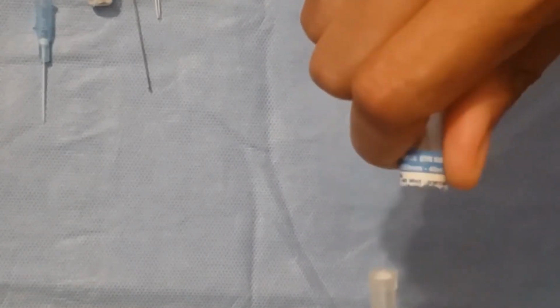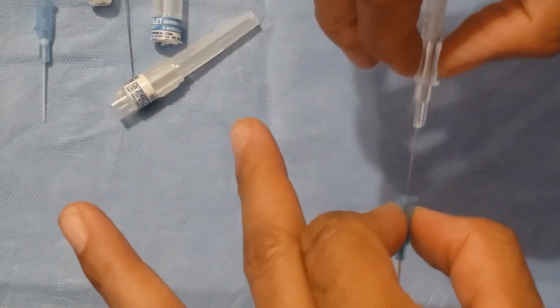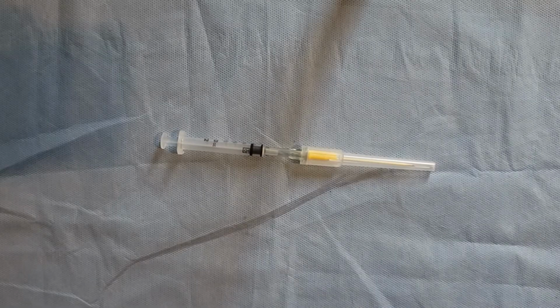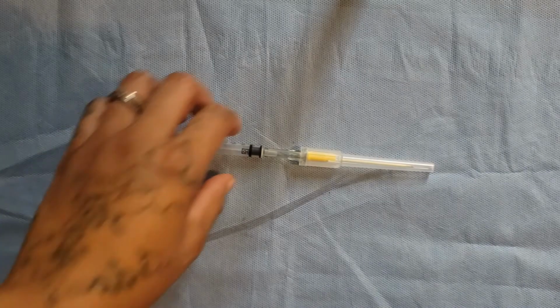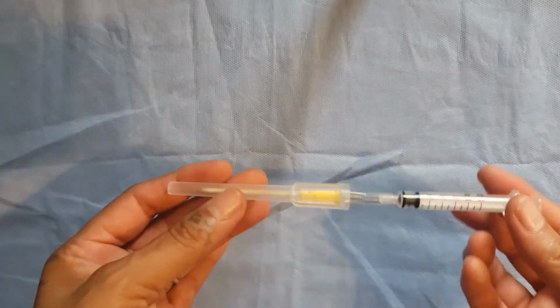This intracath is encased in a hard plastic shell with paper seal indicating sterility. If the paper seal is broken or damaged, you should not use it. Twist the case by holding the top and bottom pieces firmly. Here we have a catheter that comes with a 1.2 ml syringe. This can be very useful when you need a small amount of blood for tube samples.